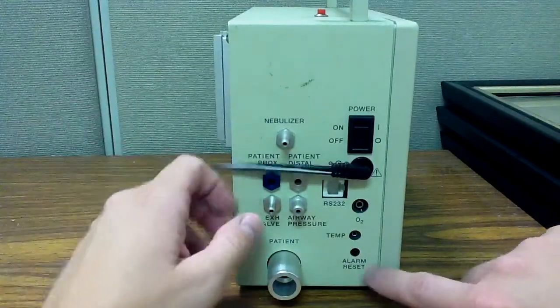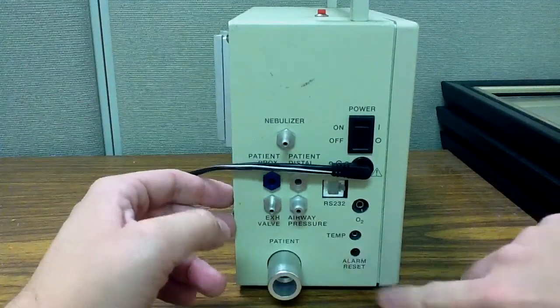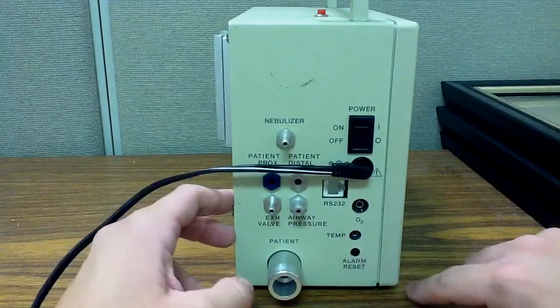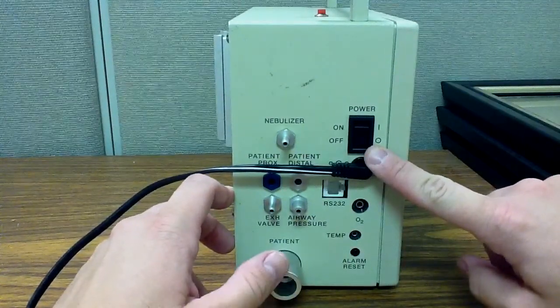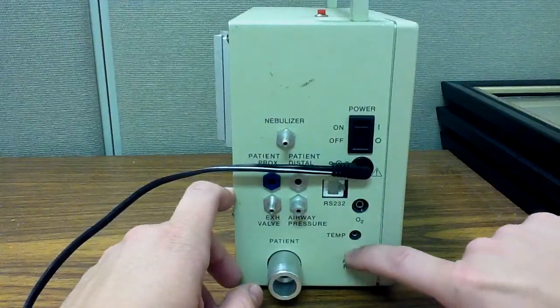One of the most important buttons you'll find is this button here, the alarm reset. That resets your alarms. Also, when you turn the power of the ventilator off after using it, it will alarm and you'll have to reset that.